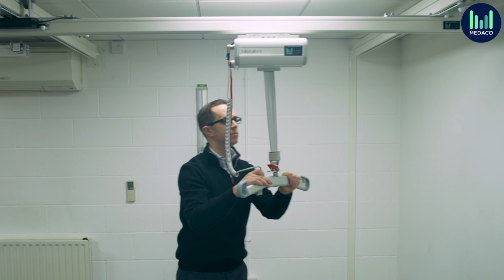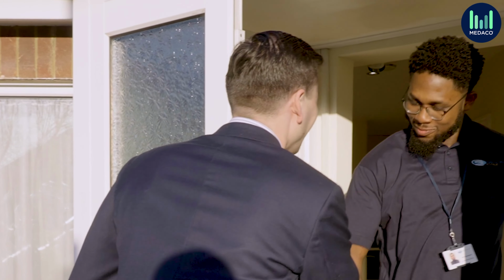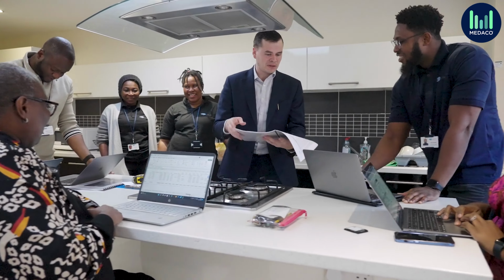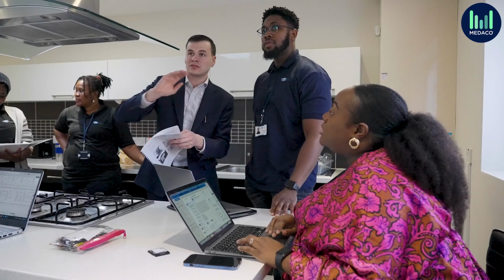Overhead ceiling track designs and installations is site-specific, and your facility's suitability for installation is a driving factor. An initial technical installation survey should be conducted by a professional surveyor to assess your room's dimensions, your requirements, the site layout, the capacity, and what you need to achieve with your hoisting. Your surveyor will then create you a custom proposal for your ceiling hoist design that is based on either a straight rail system or an XY system or H-frame system.